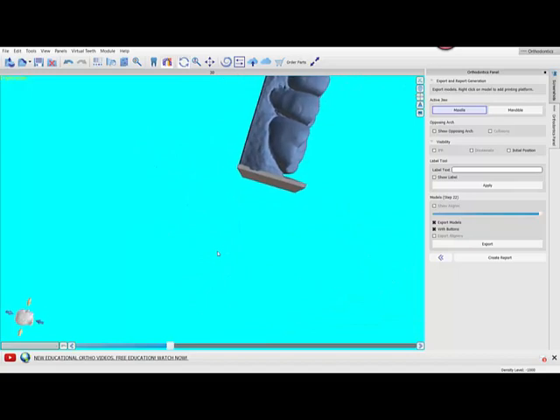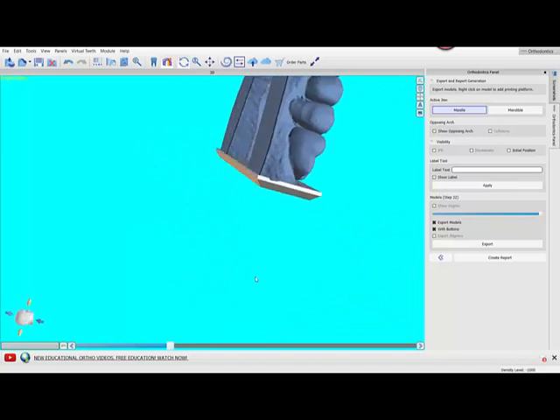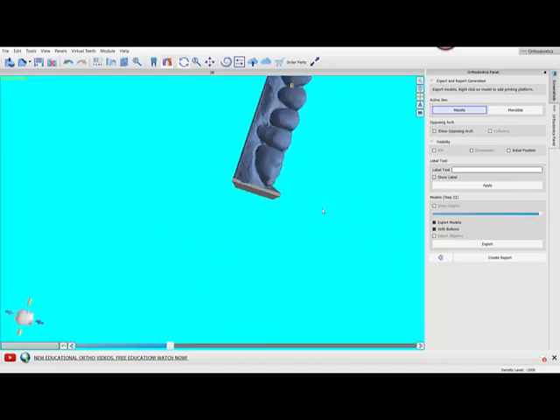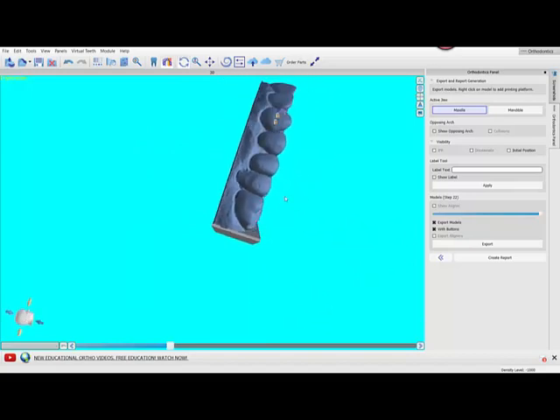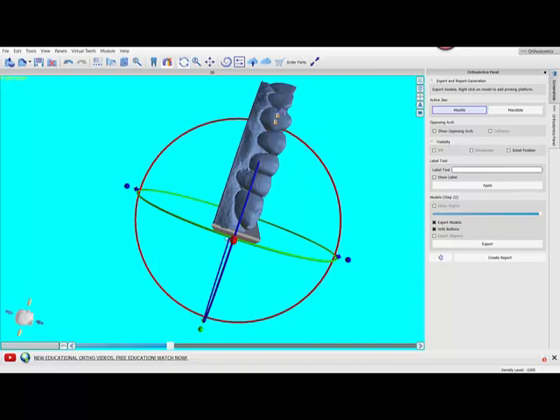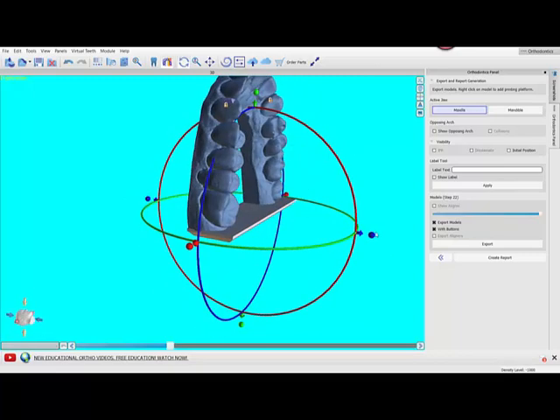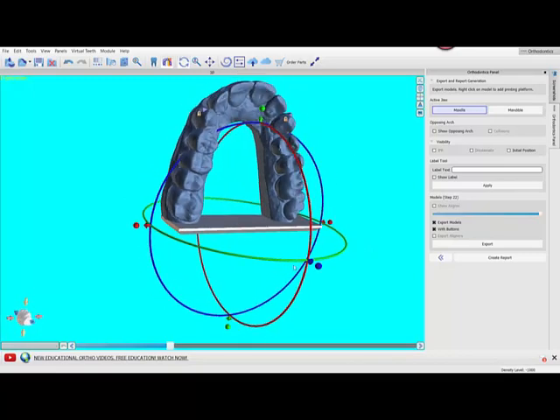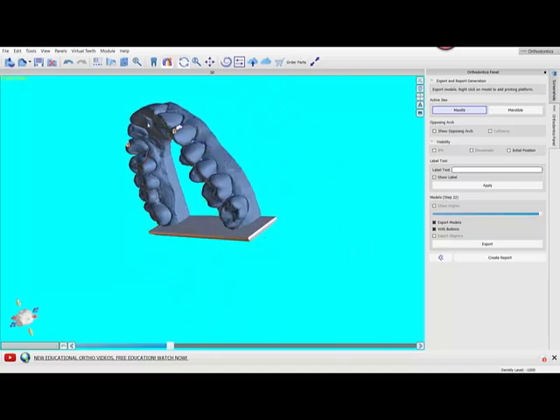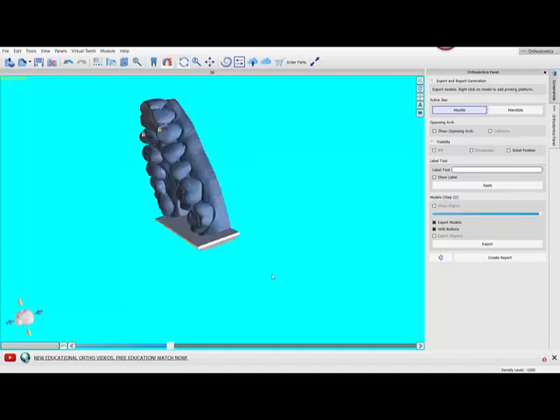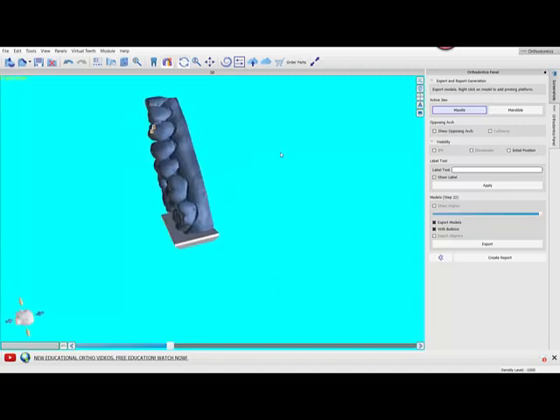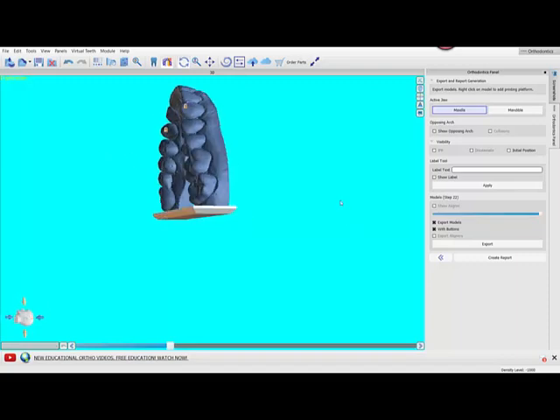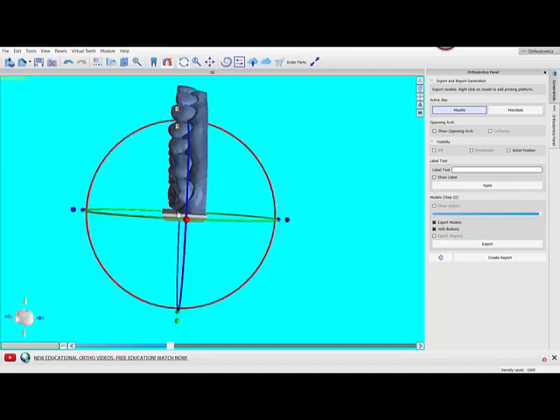The second thing I do is I look at the angle. It's going to add at an angle 90 degrees to the model. If you have retroclined incisors, particularly in the lower arch, or an upper incisor that is in crossbite, it's going to be sticking down and it has the propensity for print failure or a greater risk of print failure.